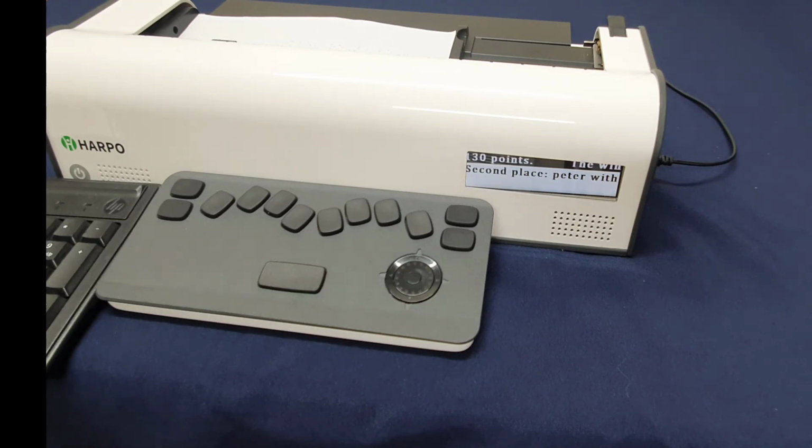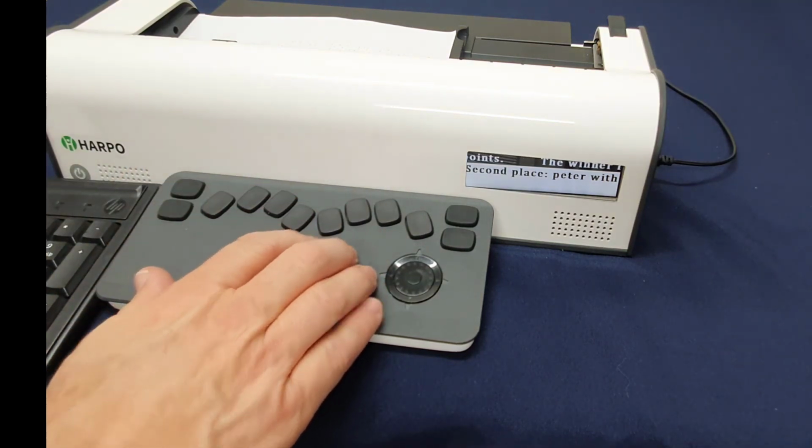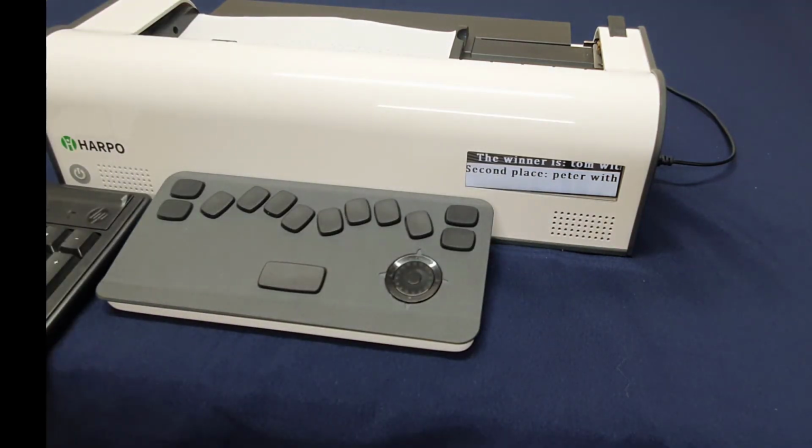The shorter words get less points, and if you make misspellings, you'll get negative points as well. You may have noticed that as I was typing, I was only using grade 1 for this game. I can't use grade 2 for this game at the moment. But grade 1, on the Mountbatten keyboard, and of course it is always grade 1 on the QWERTY keyboard. So that's the letter relay race game. It's one of a couple of games on the Mountbatten Tutor, and there will be many more added over time.